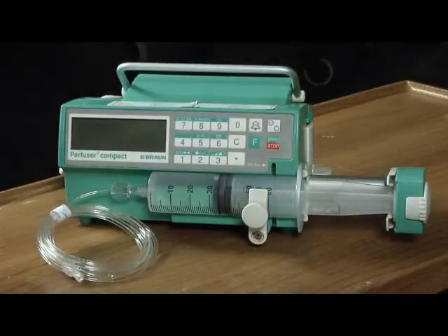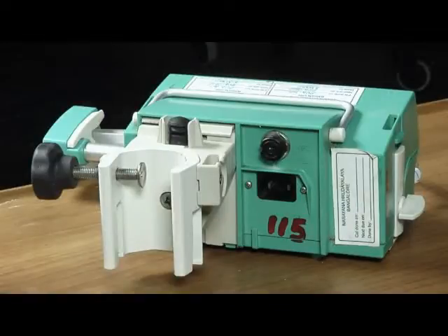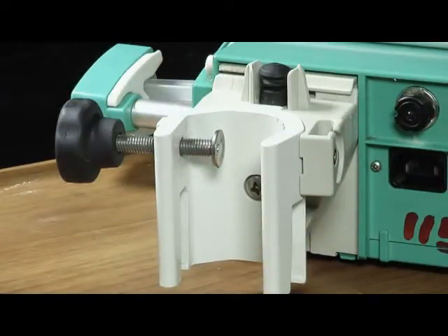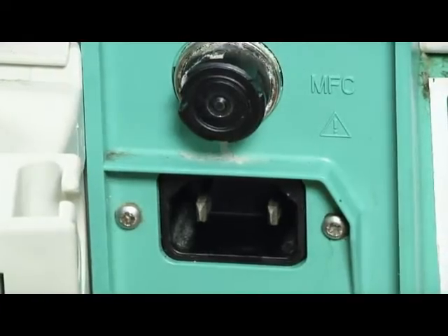A syringe pump allows the exact rate of flow of medicines to the patient who needs it for critical care. It saves staff time and reduces errors.